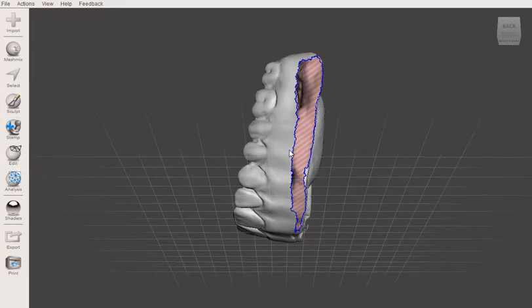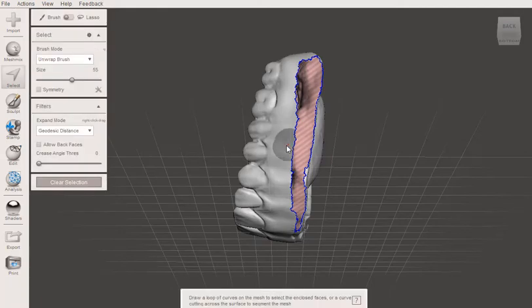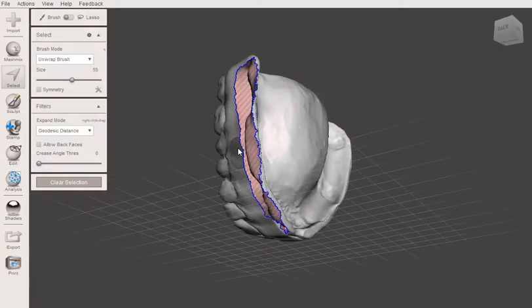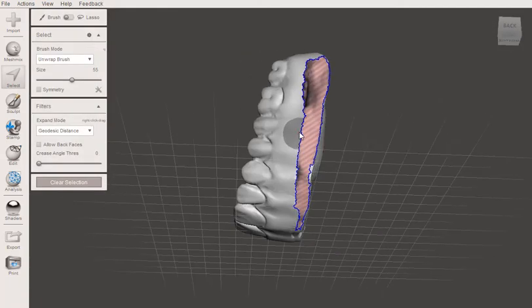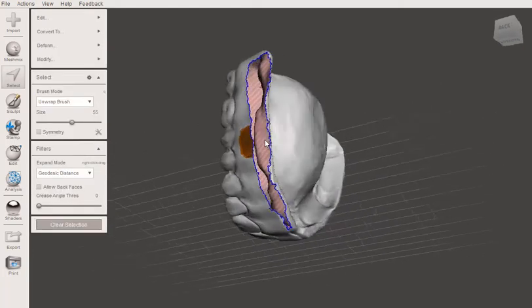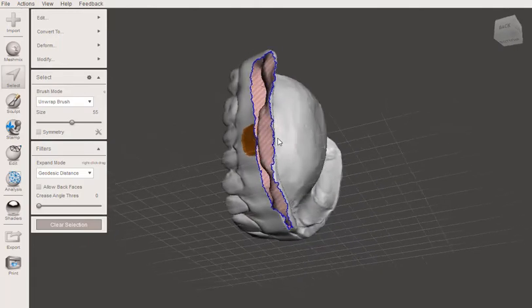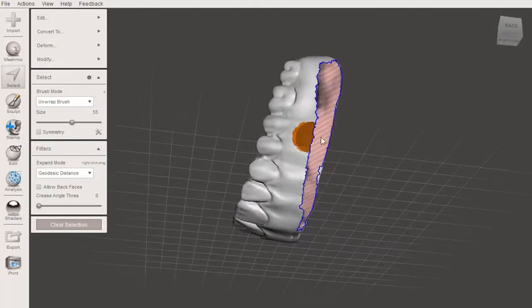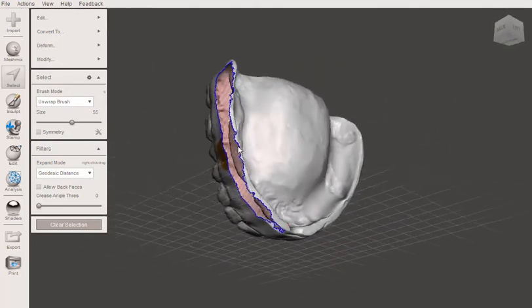So I'm going to go to add, I'm going to hit S for select. And the more you use Meshmixer, the more I recommend kind of learning the buttons, just the quick button tip. So I am going to use what's called a bridge feature here.